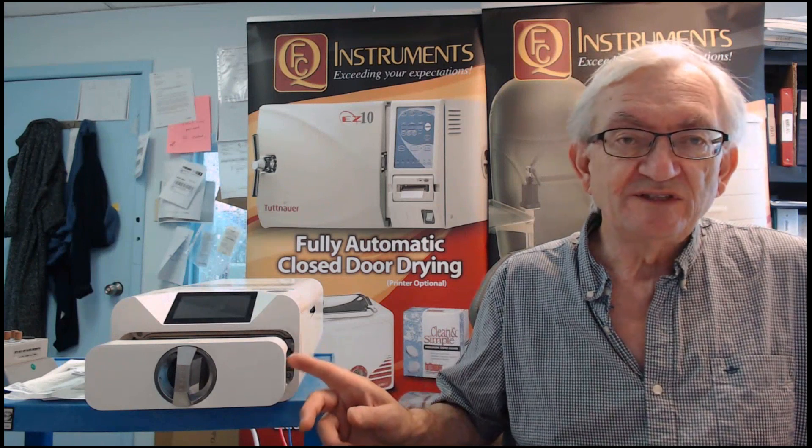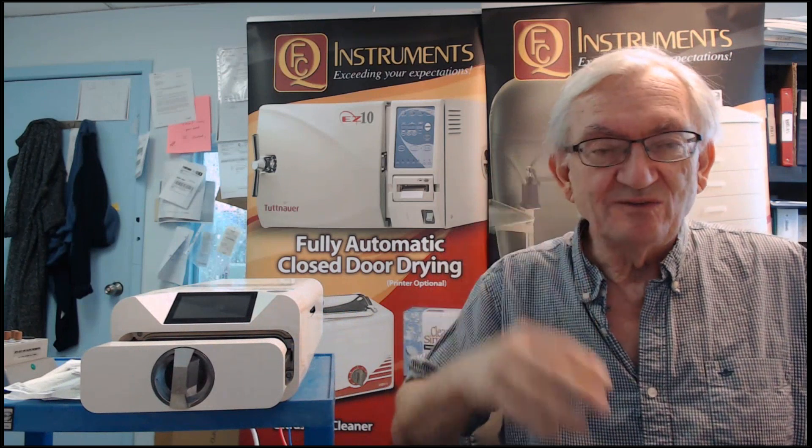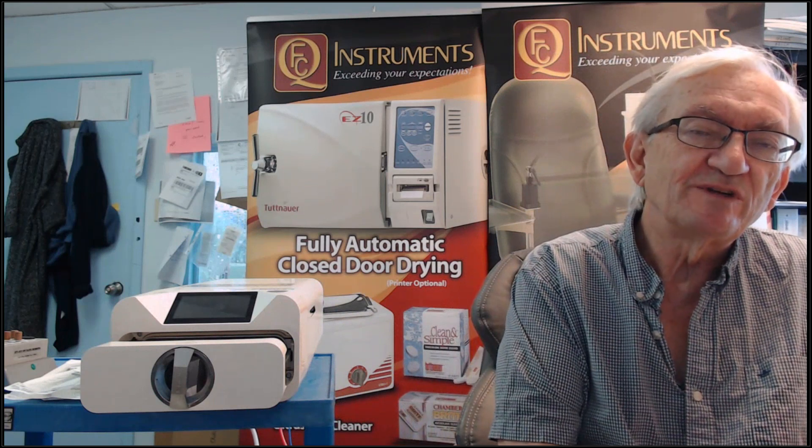We've certainly had our fair share of technical problems. I'm going to record this one with the hope that anyone who's suffered through some of the other problem presentations might have most of the information easily at hand. The autoclave is sitting beside me. I have the door open simply because you can't open it if the power is out — in an earlier presentation we had a power issue and things all went wrong. I want to basically explain why the autoclave works very well for some people, might not be perfect for your setting, and how you might determine if it works for you.